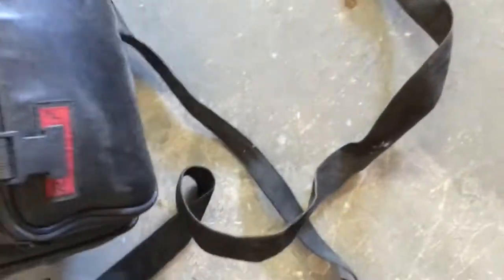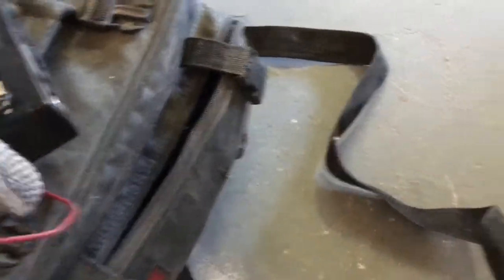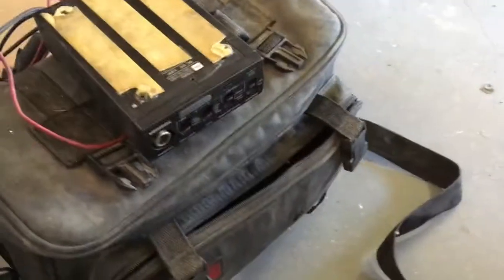It all came in this little carrying case here. So that's the carrying case. When did dentists use these — like the 1980s or something? Yeah, probably the 80s, up into the 90s. I can't remember when I got it.